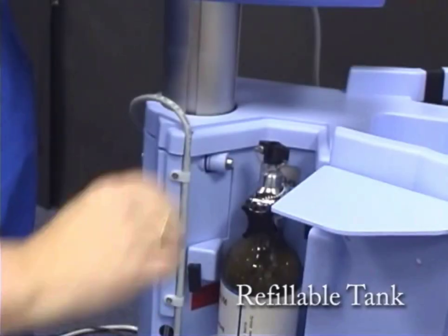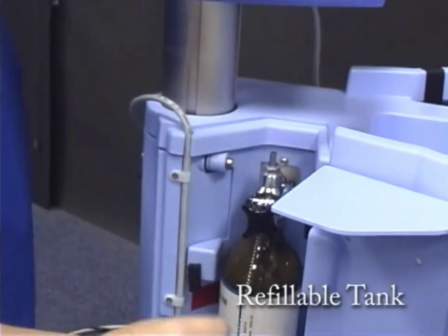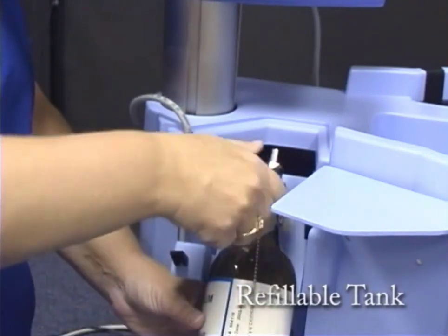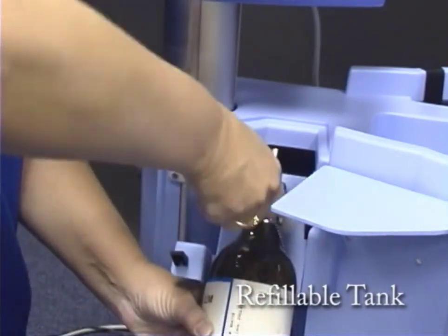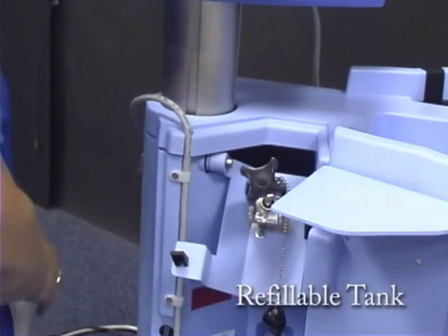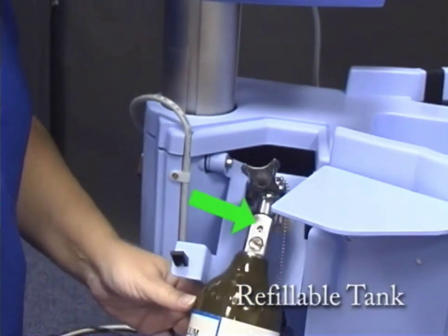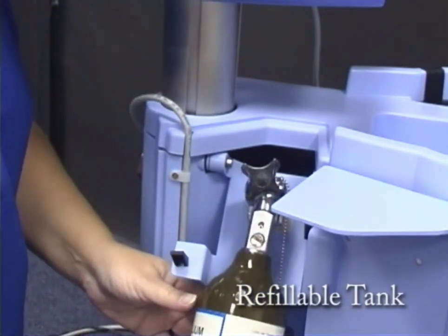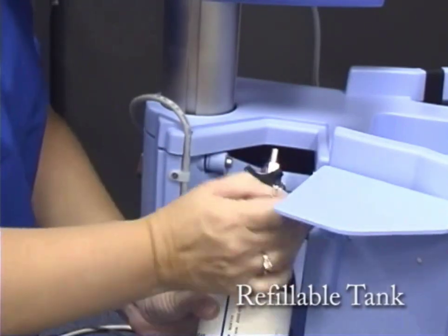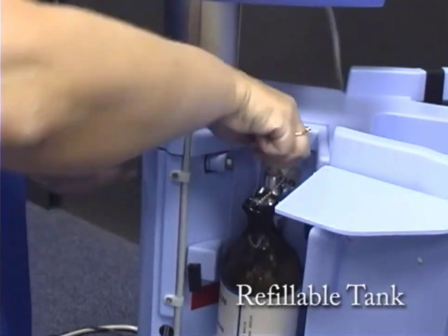Angle the tank downwards and secure the latch. To change the refillable tank, close the valve on the top of the tank using the key provided. Push the latch lever up and angle the tank upwards. Loosen the tank using the key provided from the D-ring assembly and slide the tank out. Place the full tank into the D-ring assembly, making sure to line up the pins in the assembly to the holes in the tank and tighten. Angle the tank down and secure the latch. Open the valve on the top of the tank.